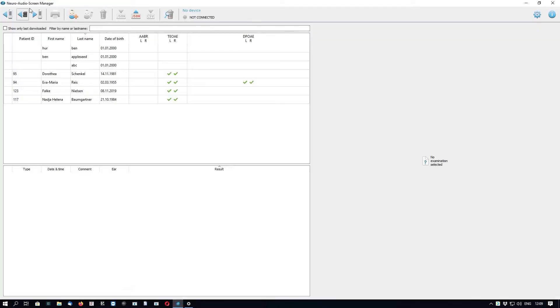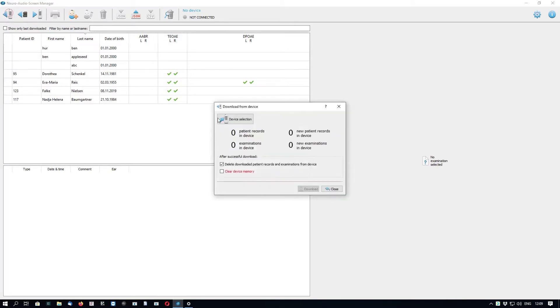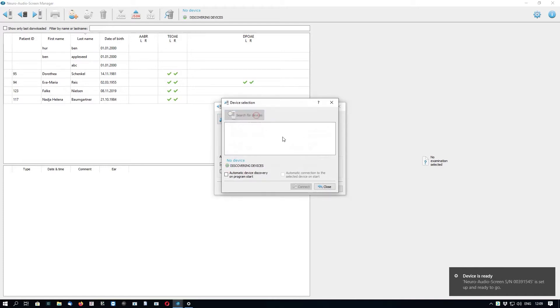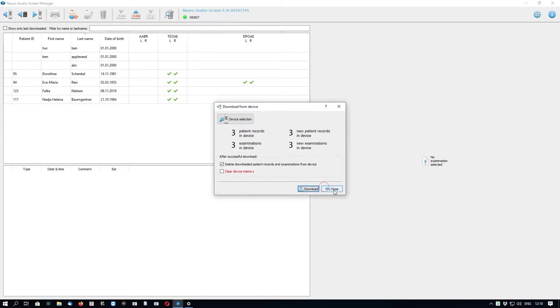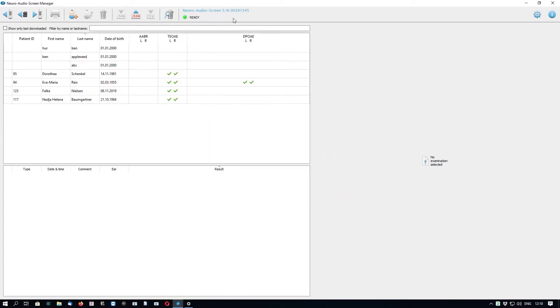Now we can go to the NeuroAudioScreenManager software and click the button to download from device. Click Device Selection, then Search for devices. After some time, we will see our device with its serial number. It is important to click the checkboxes for automatic device discovery on program start and automatic connection to the selected device on start. Then click Connect. At the top panel, we can see the status showing our device is connected and ready.